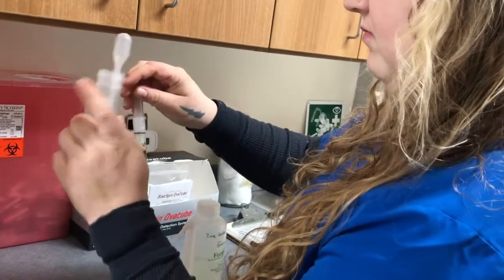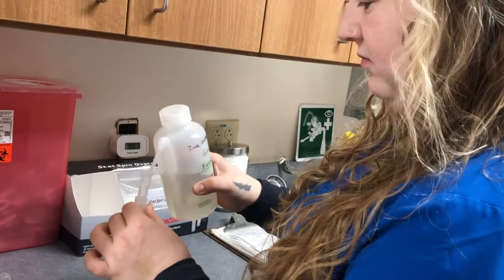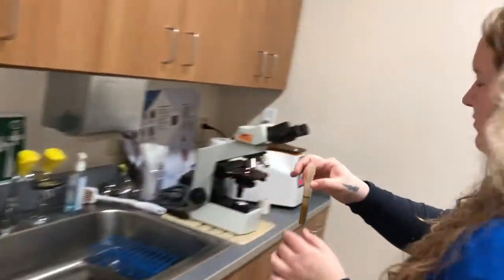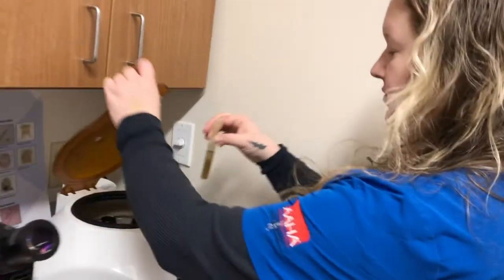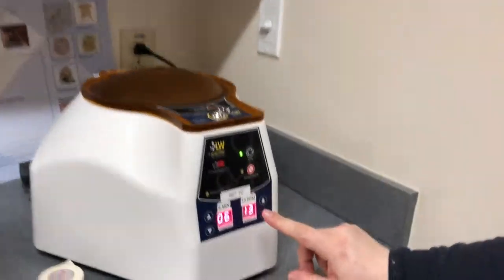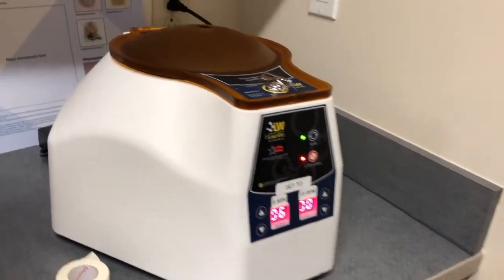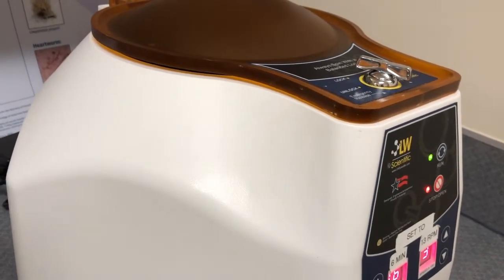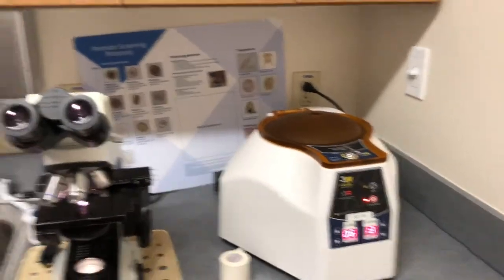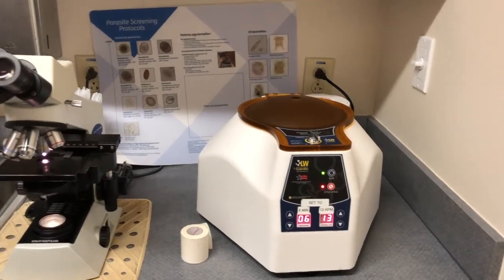She's going to lock that filter in place — it takes some of the big debris out so we'll have a nice clean sample when it's finished spinning. She's going to take this, put it in the centrifuge, and it's going to spin for six minutes at 1,300 RPM. This is a high-tech machine — it's got a little sound to it, but our old centrifuge would just knock your socks off, it used to be so loud.